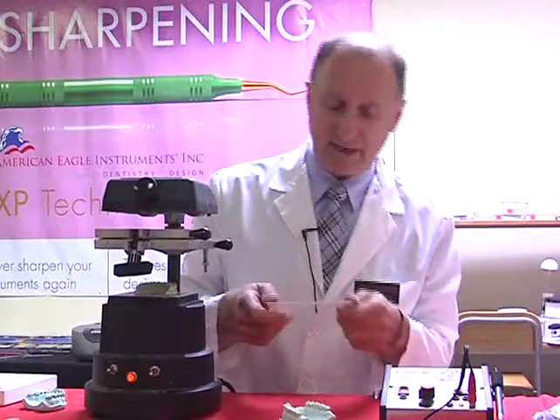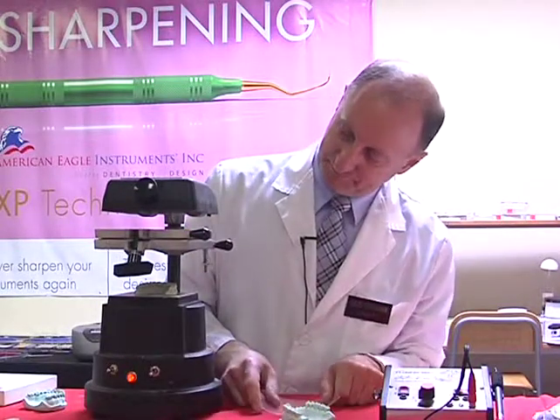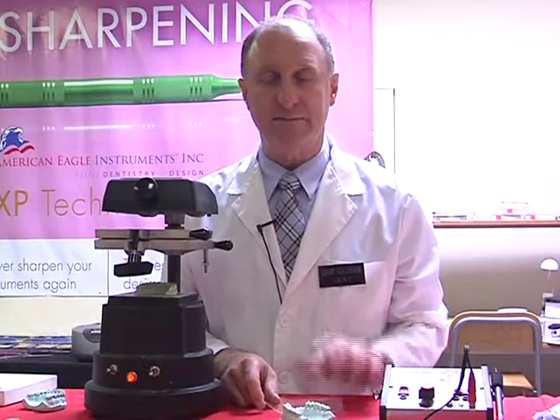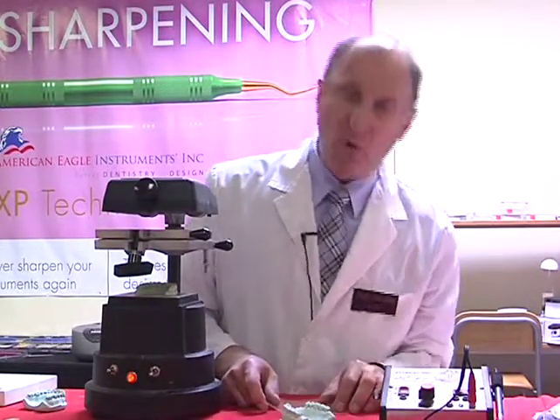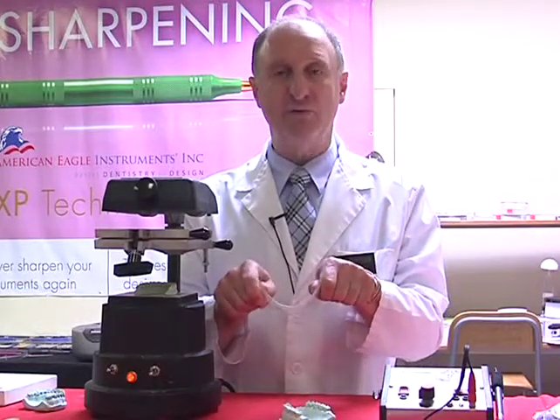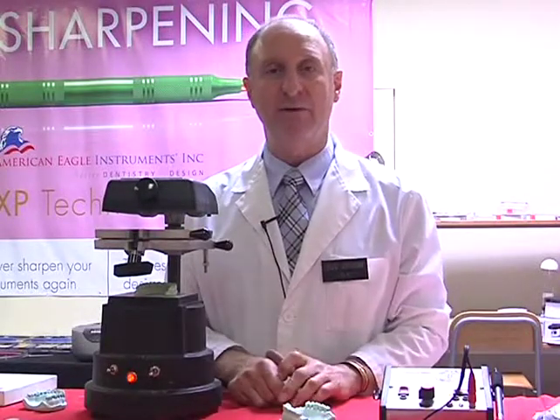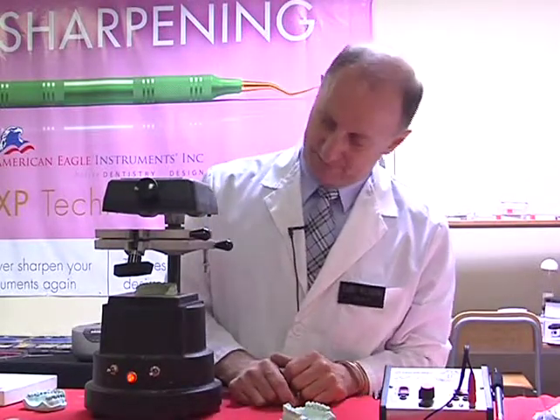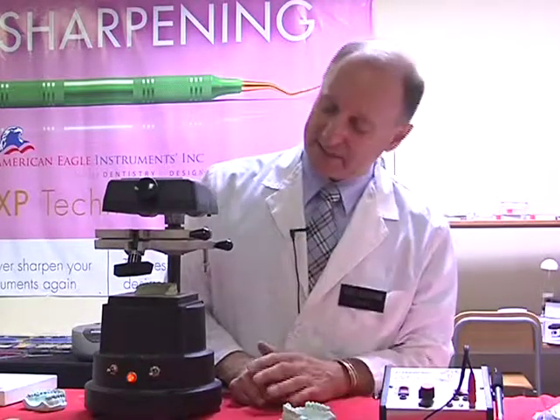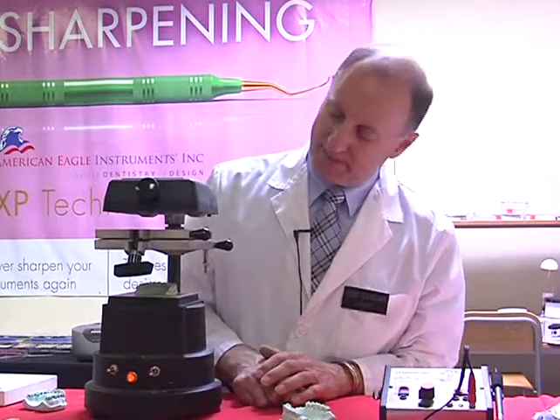Presently, it's going through its stage of facing upwards. Again, because I've just turned the system on and it's obviously a little cold to start, it's heating through. Once it's heated, as I mentioned, it will go that little wavy pattern and then droop downwards. That's the part where we've got to watch and remember our timing. The unit now is achieving greater heat, and it's now starting to drop down. So I have to be careful, stand by.